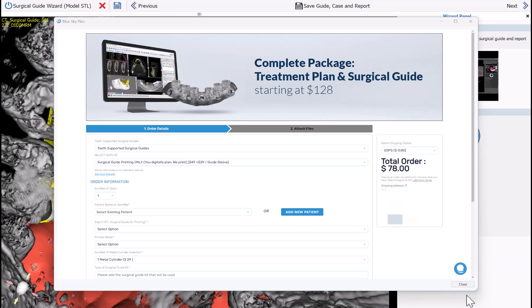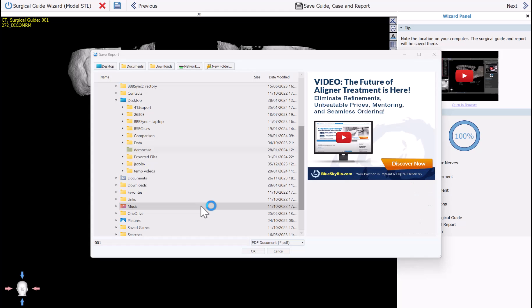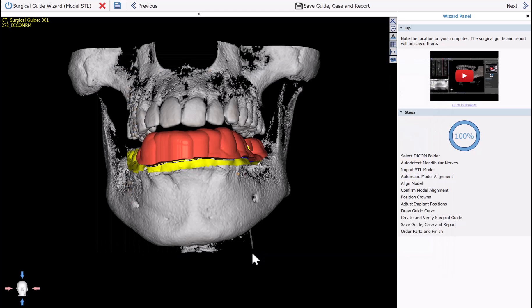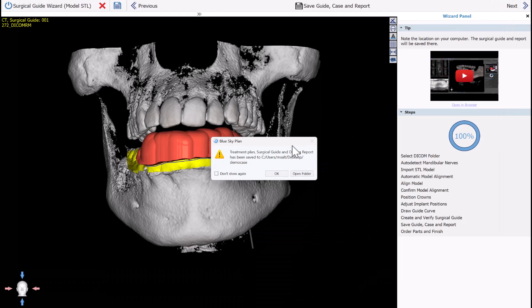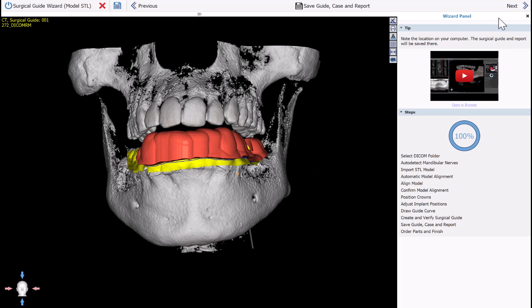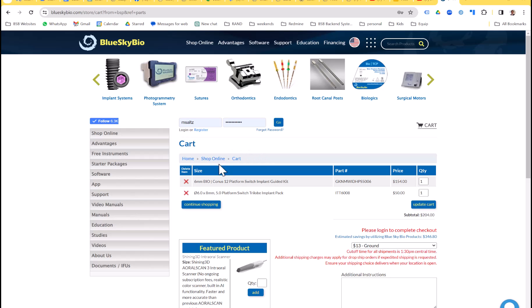I'm going to click Close — it will delete the order, that's fine. The software now prompts us to save the report, so I'll select that same folder as before and click OK. The report has been saved and opened on the computer. You can access the folder where you saved everything by clicking Open Folder, or if you're done go ahead and click OK.